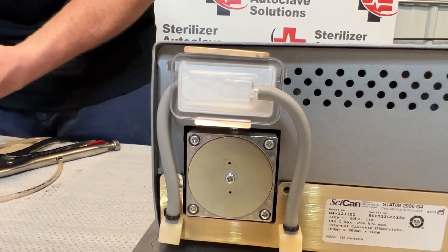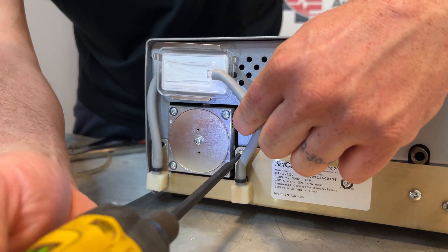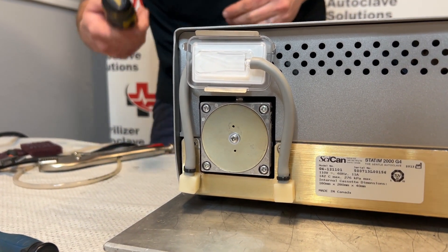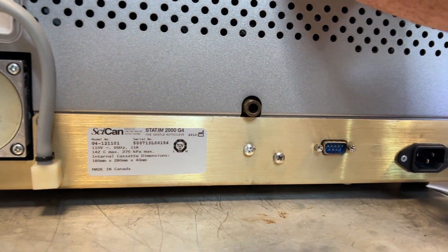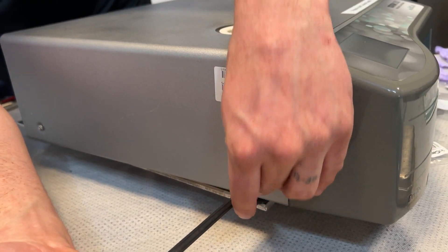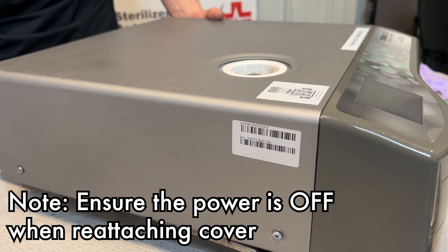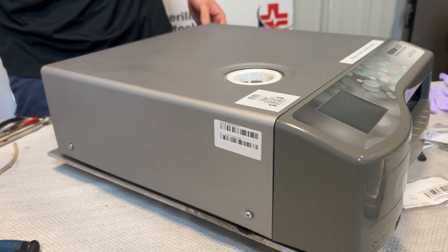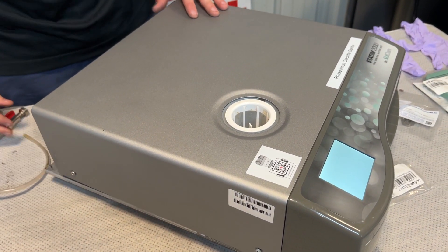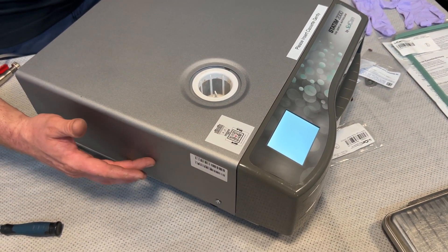At this time we're going to put the screws back in. I usually start with the back — it helps pull the entire top into place. When screwing the top on and off, you want to make sure that you have the power off. You can plug the unit in before you put the screws in to make sure that the screen is working. You also want to be careful not to pinch any of your wires as you're putting that back on.